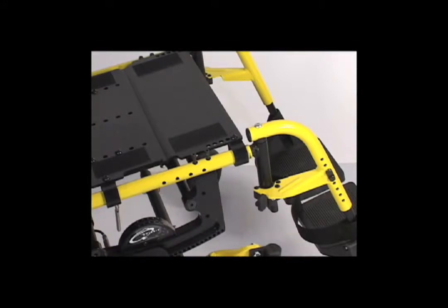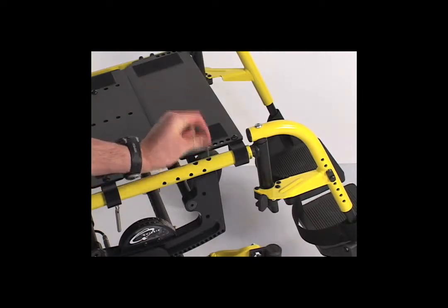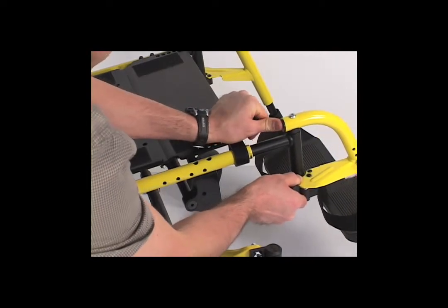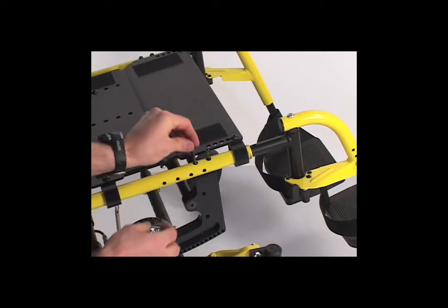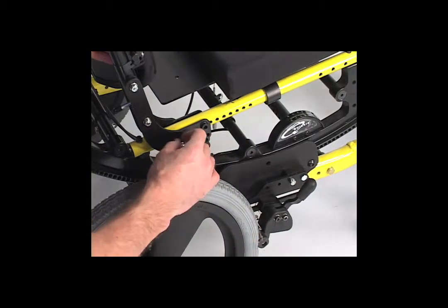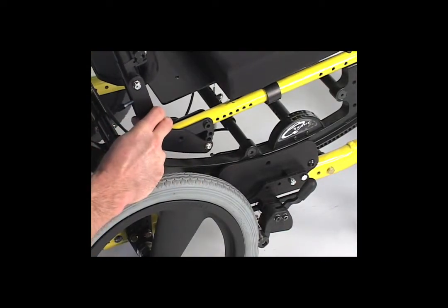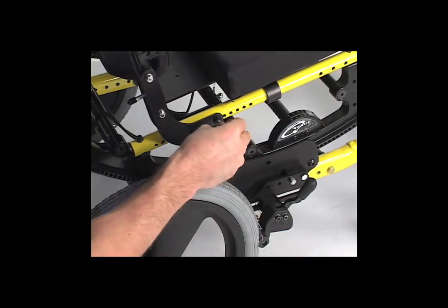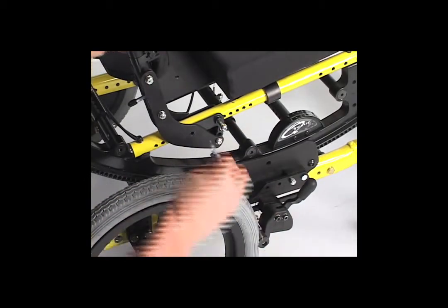In order to move the CG forward to the CR or center of rotation, simply pull the two screws that hold the hanger assembly in place in the seat rail, move it forward the desired distance, and reinsert the fasteners. In the rear, pull the fasteners that hold the back cane assembly in position on the seat rail and move it forward the same distance. The seat depth has been maintained — the distance between the back canes and the footrests — but the entire seating system has been moved along the seat rail forward to align the CG and CR.